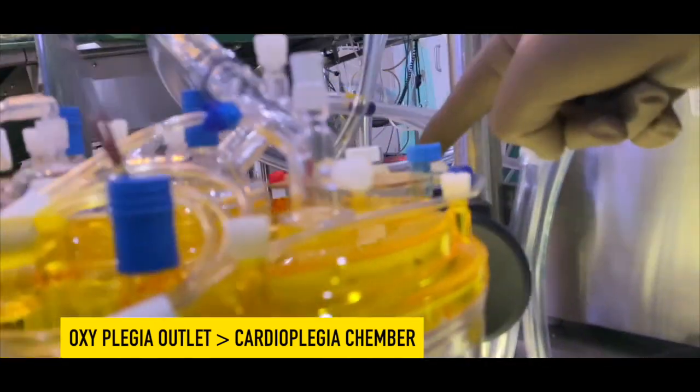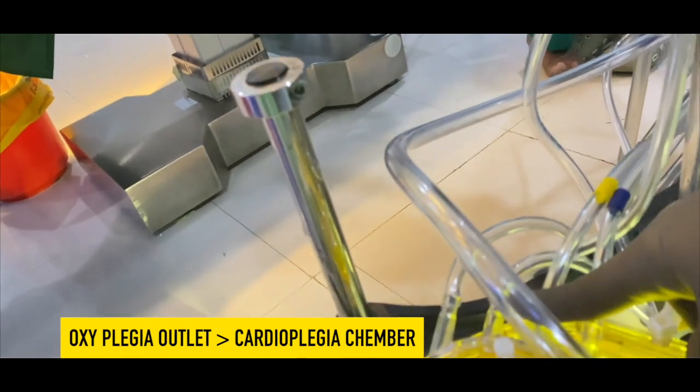This is extra recirculation line and I have attached Y connector in that. One port will go towards cardioplegia chamber.